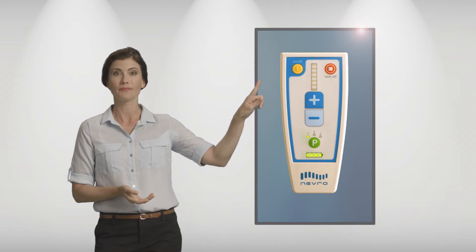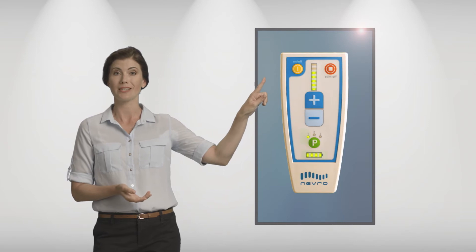To turn the therapy back on, press the plus button and the ladder lights will return to indicate therapy is on. The ladder lights correspond to the schedule that has been given to you.